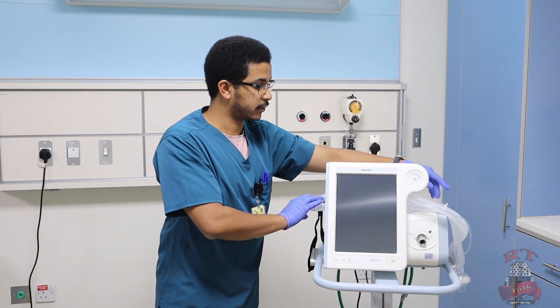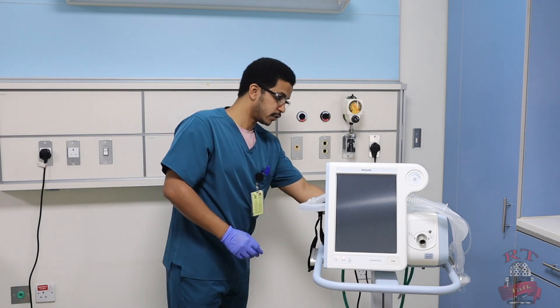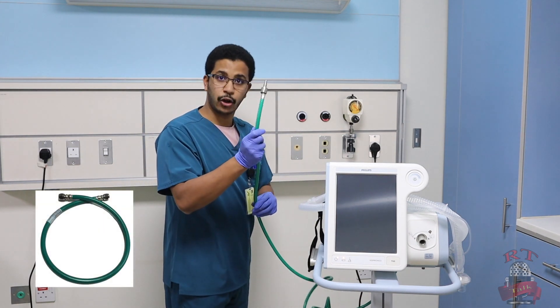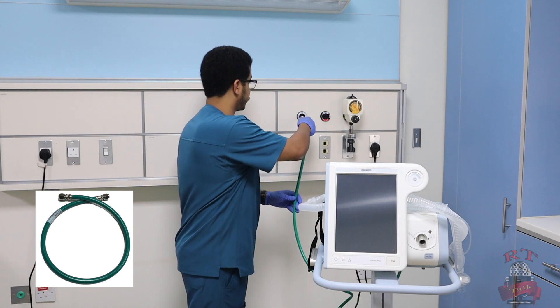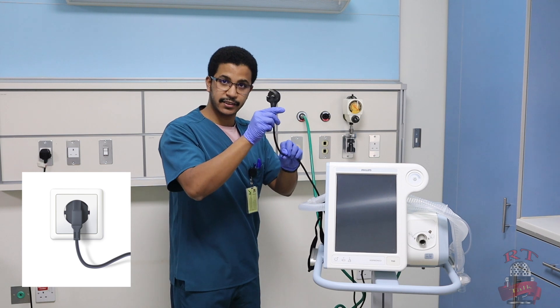I will start first with my machine. So I will connect my oxygen line, and two, I will connect my electricity.